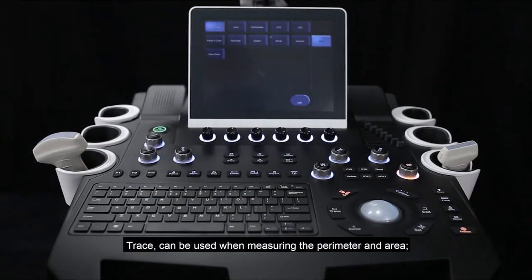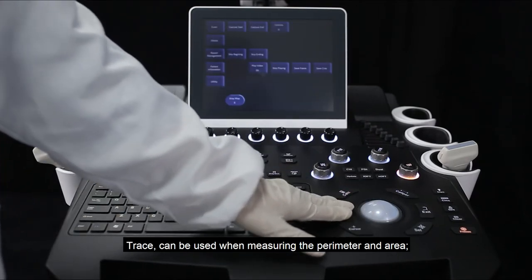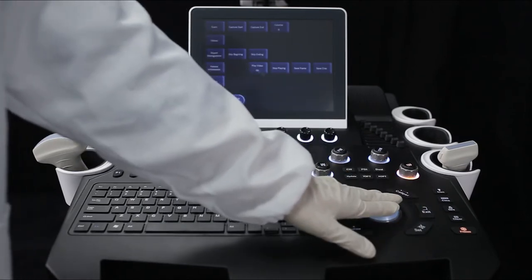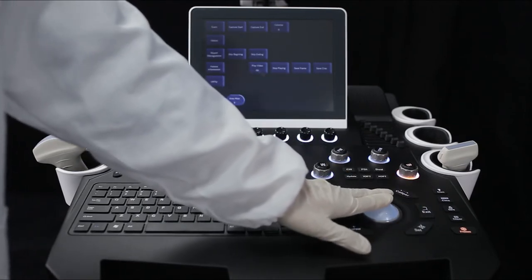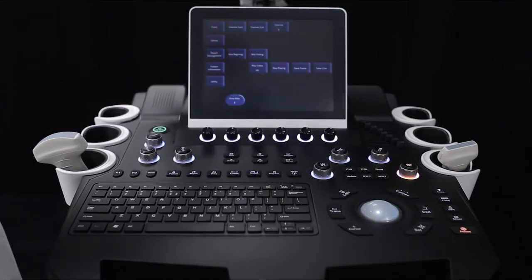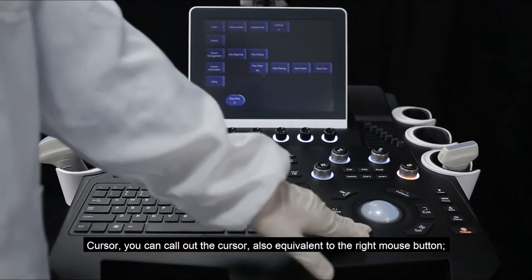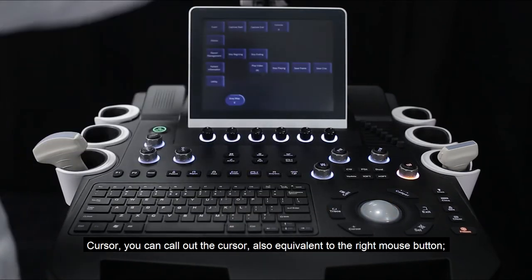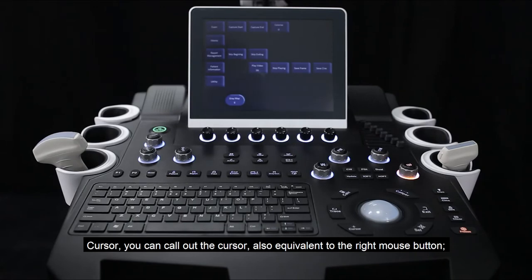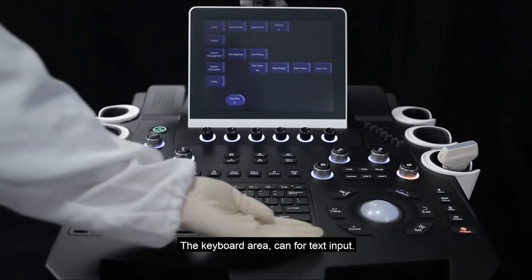Calc is a specialist measurement button that can carry out relevant examination measurements. Trace can be used when measuring perimeter and area. Cursor can call out the cursor and is also equivalent to the right mouse button. The keyboard area can be used for text input.